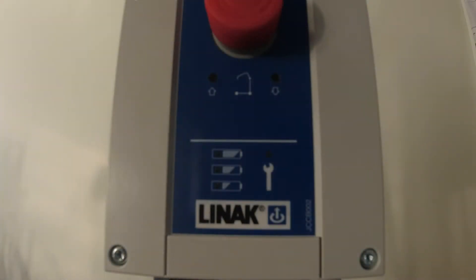When the handset is activated the battery display indicator will activate and display the charge status. Green means the battery is okay and no charging is needed. Amber means the battery needs charging.